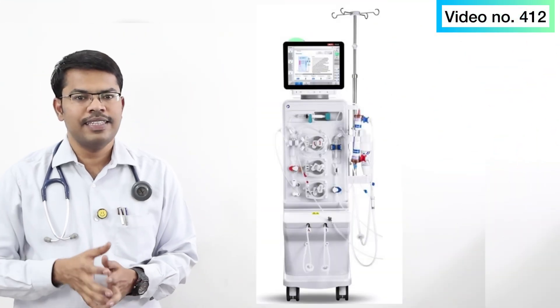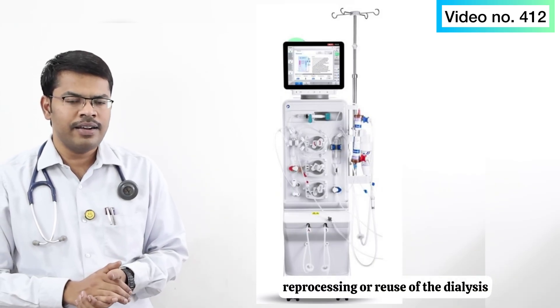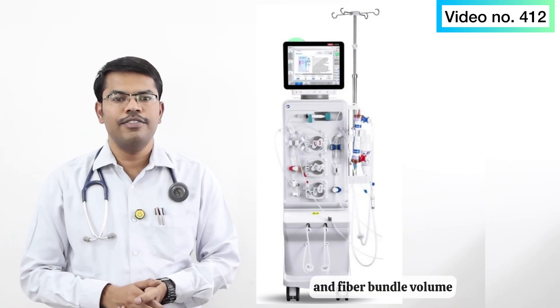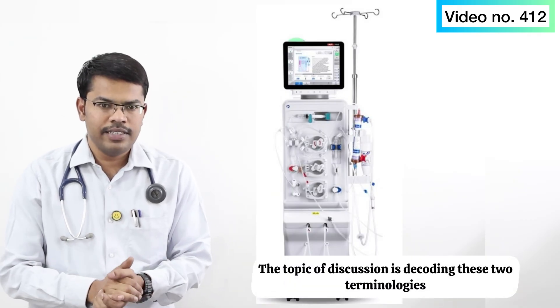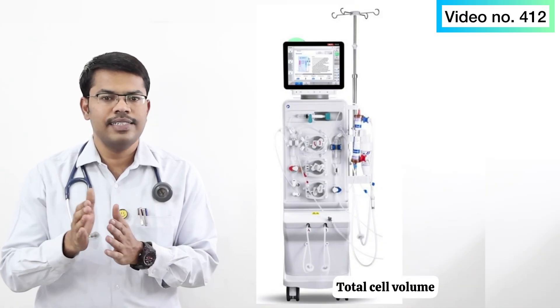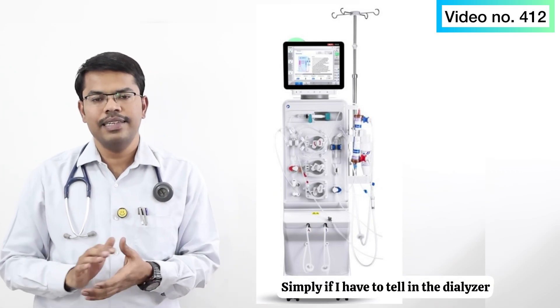In the dialysis unit there is terminology related to the reprocessing or reuse of the dialyzer — total cell volume and fiber bundle volume. The topic of discussion is decoding these two terminologies related to the dialyzer: total cell volume and fiber bundle volume.